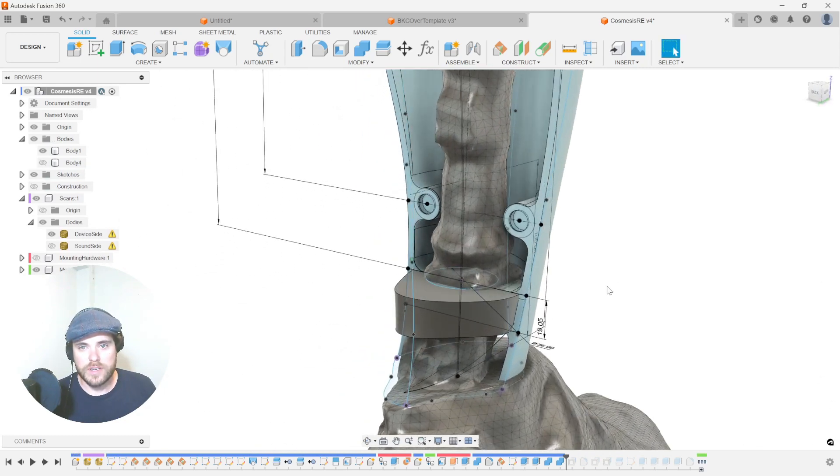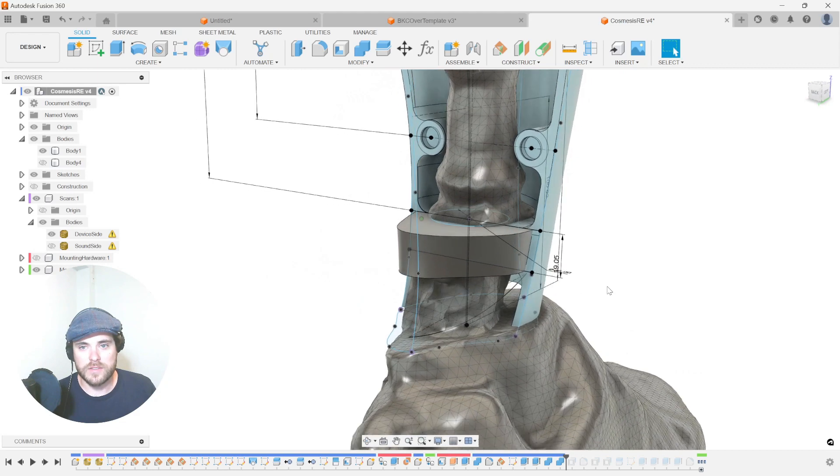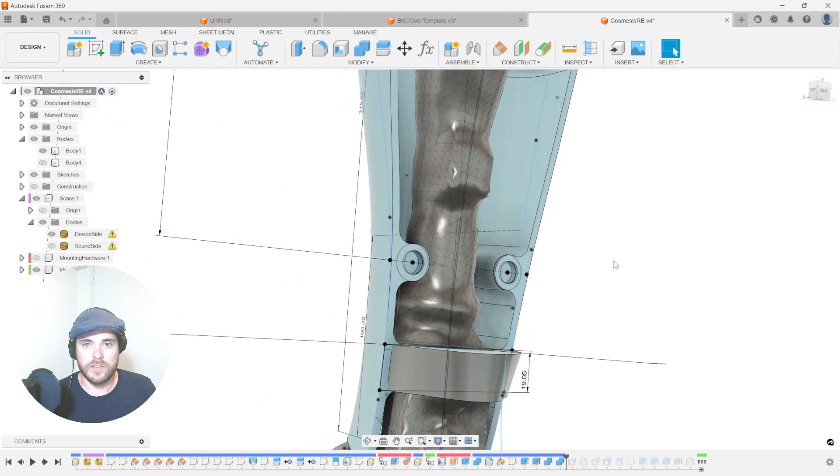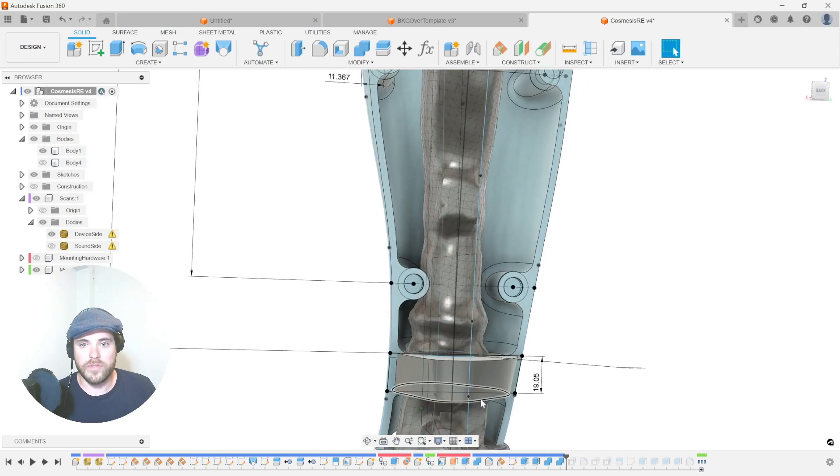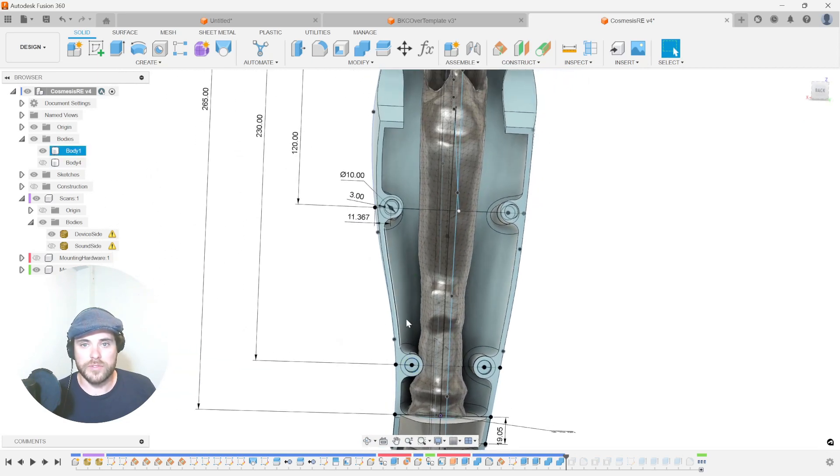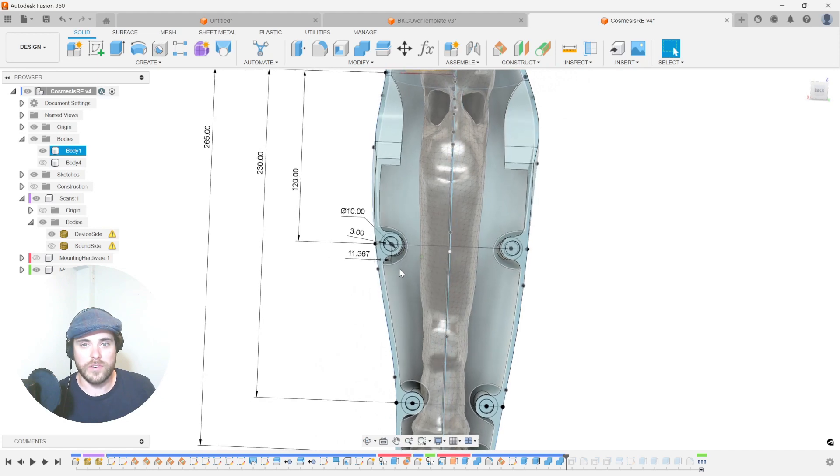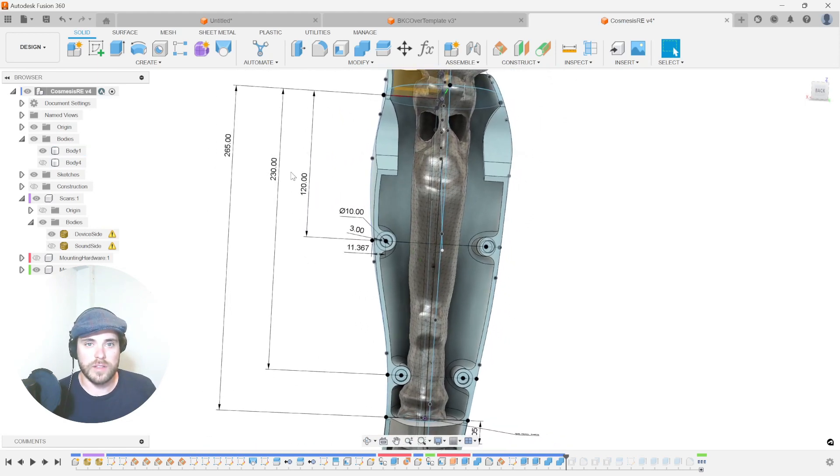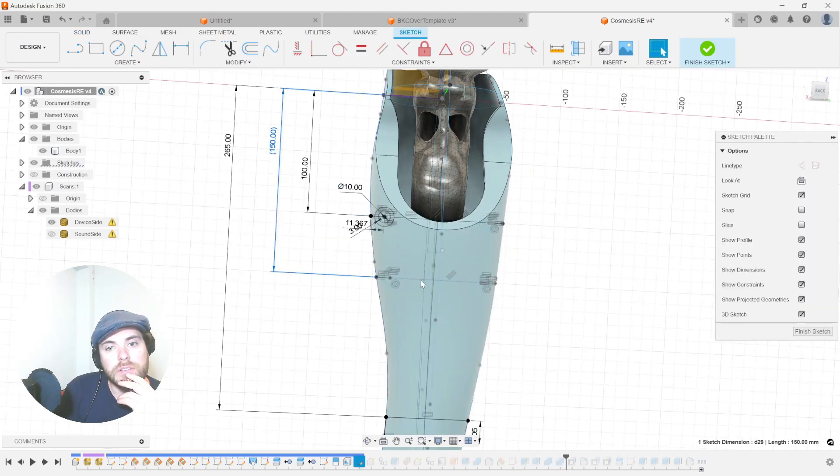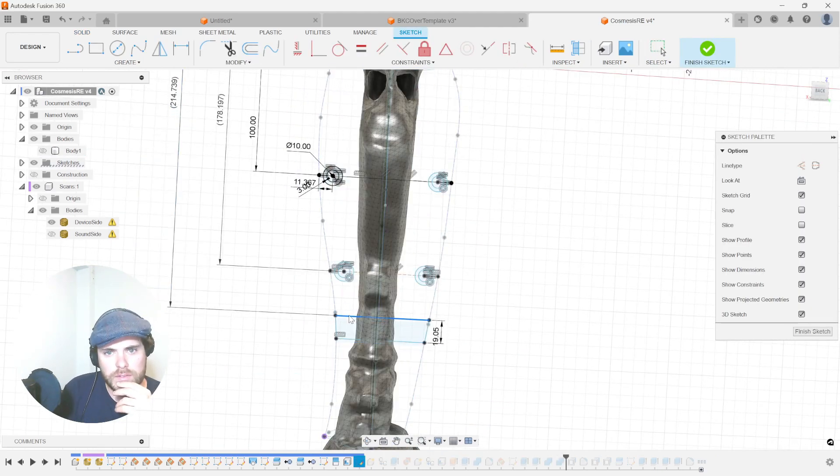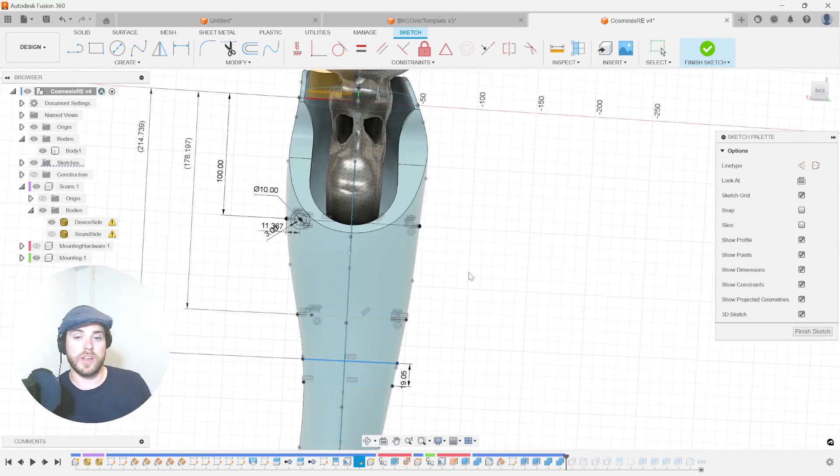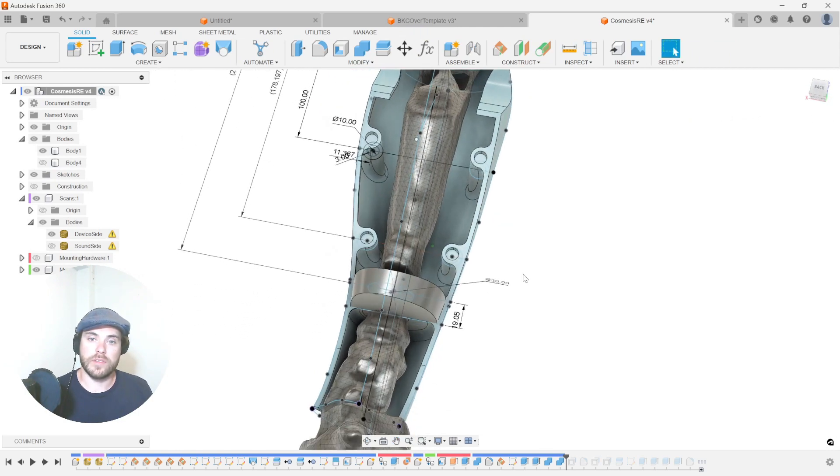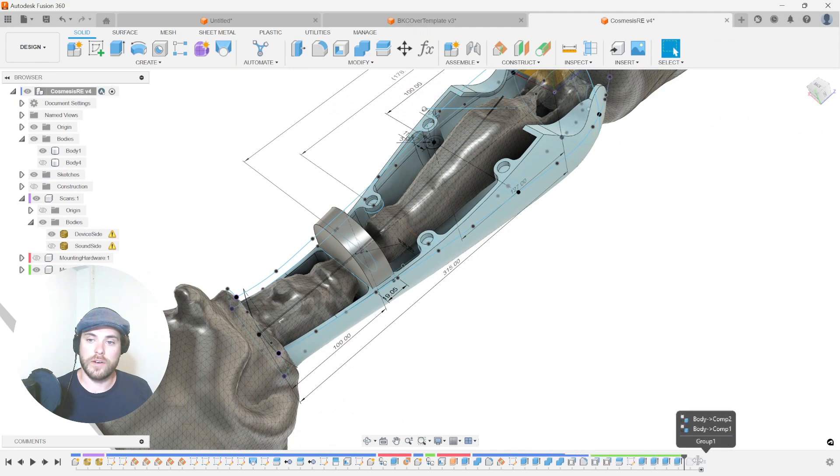Let's jump ahead now in the template when we have our mounting built from this curve network to see if this matches. Now our mounting puck is in the wrong spot. This is on the foot, the actual foot device. We actually need to bring this much farther up. These mounting points are also clipping with the C-legs. So we're going to have to make sure that all of that is accounted for. Let's use our template and just quickly bump these around. Let's see what that gets us when we change one of the foundational sketches for this template.